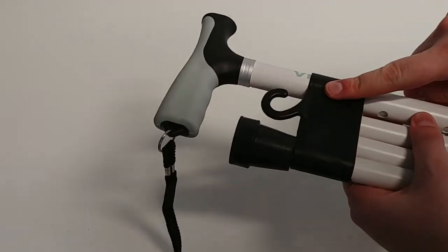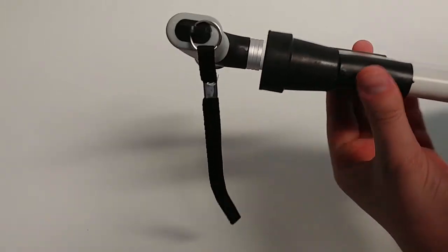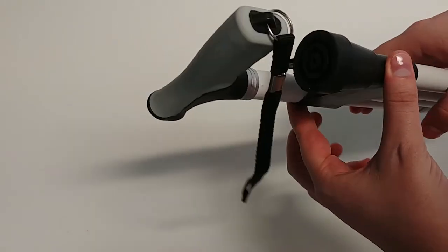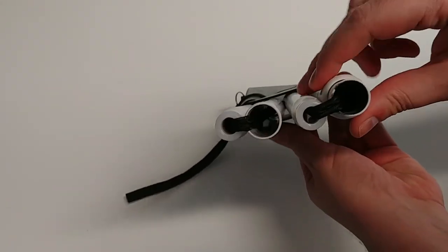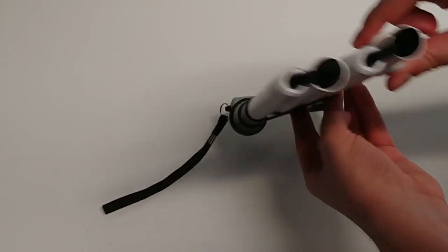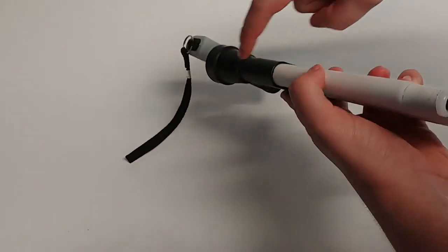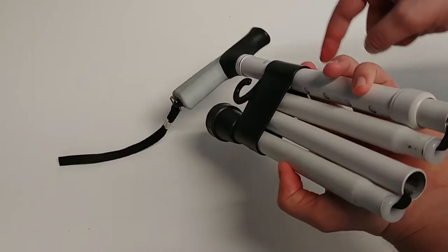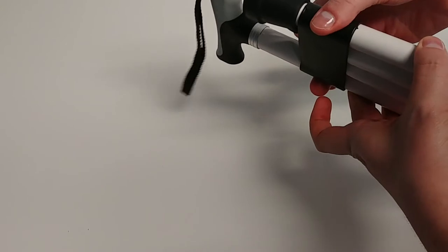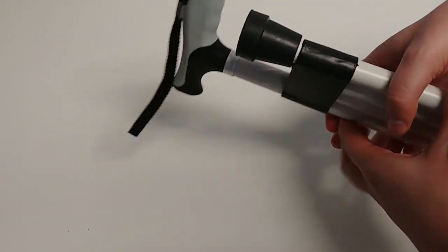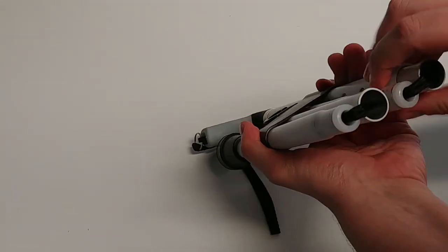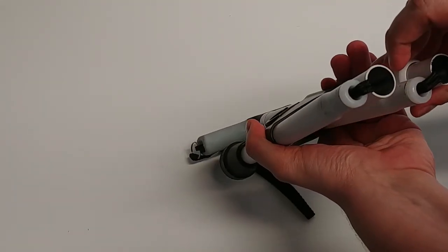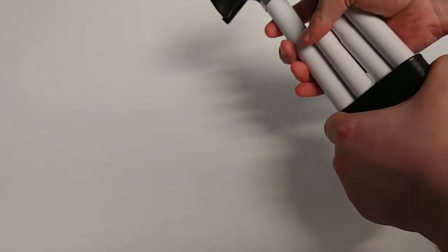You actually don't. All you'll need to do is if you look at the cane from this end, you see the strap there. These two narrow ends, what you're going to have to do is pinch those together until you'll see the strap sort of bow out. Pinch them together and the cane will come free.